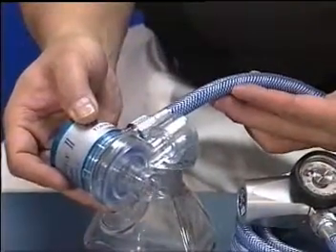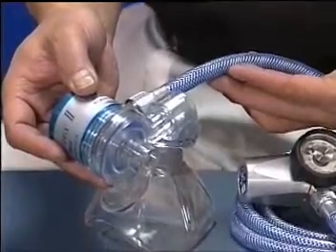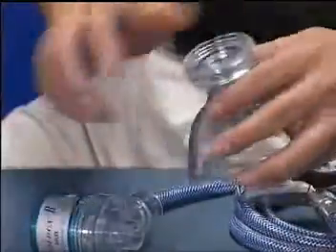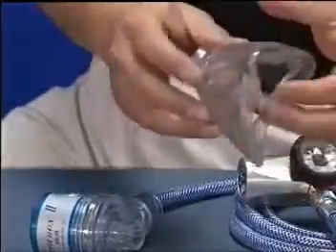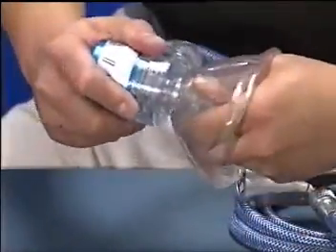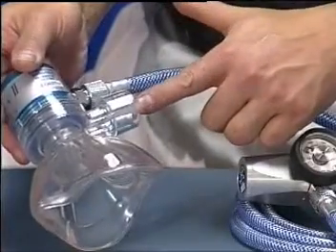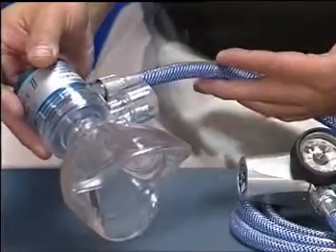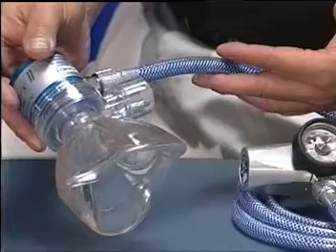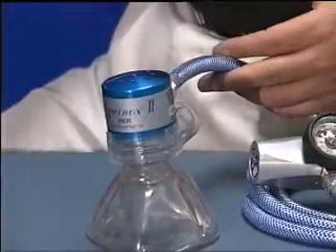When attached and with the mask sealed properly to the patient's face, the patient's exhaled breath can be scavenged from the exhalation valve by the exhaust method chosen by the facility. The 19mm by 30mm exhalation port meets the requirements of the international standards for conical connectors for low-pressure medical gas systems and will allow the attachment of corrugated tubing.